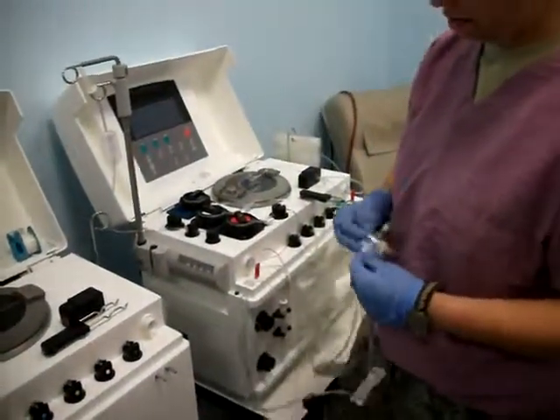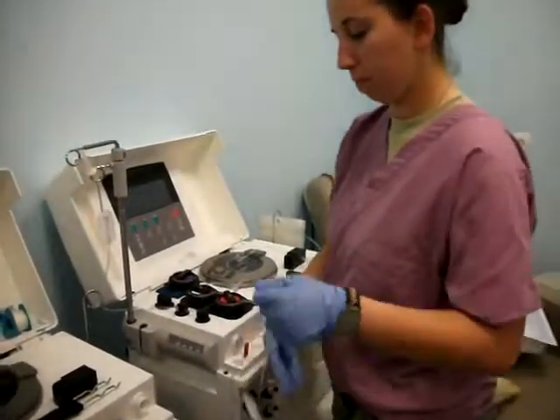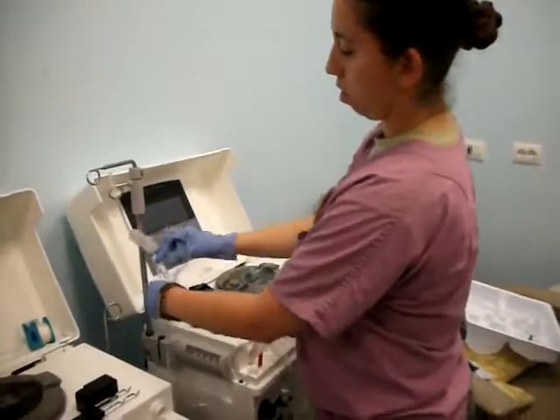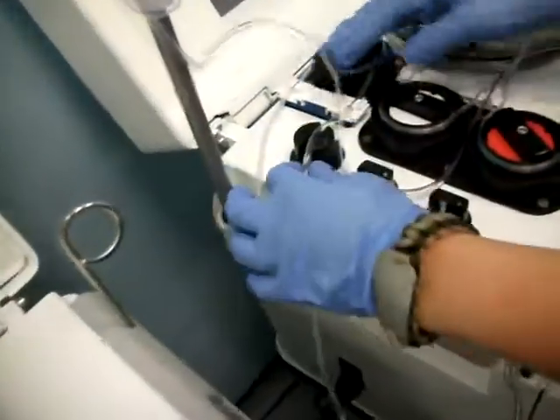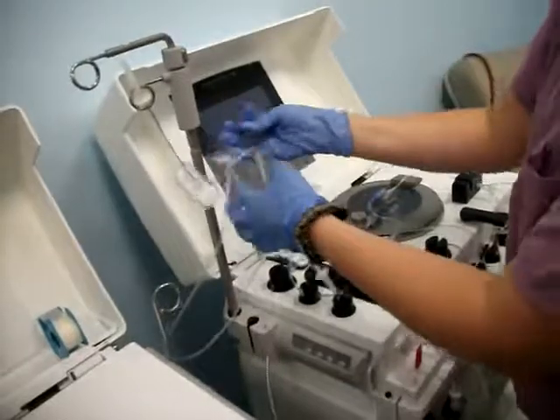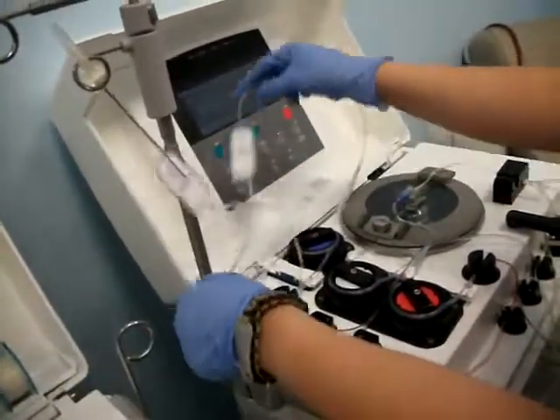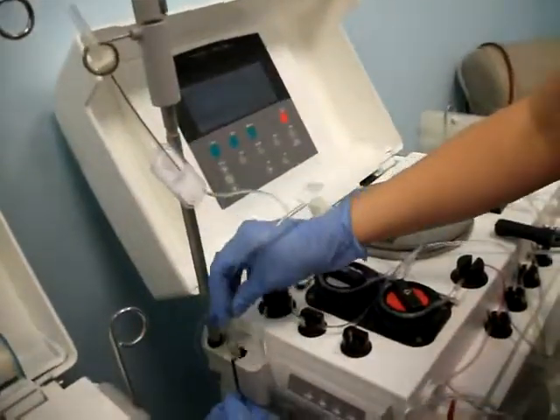Take the paper off. You're going to put this on here — the blue line and clamps. Make sure you have the tubing in the sensor. Then this right here just loops around this pole, and this part right here is going to go in the sensor.